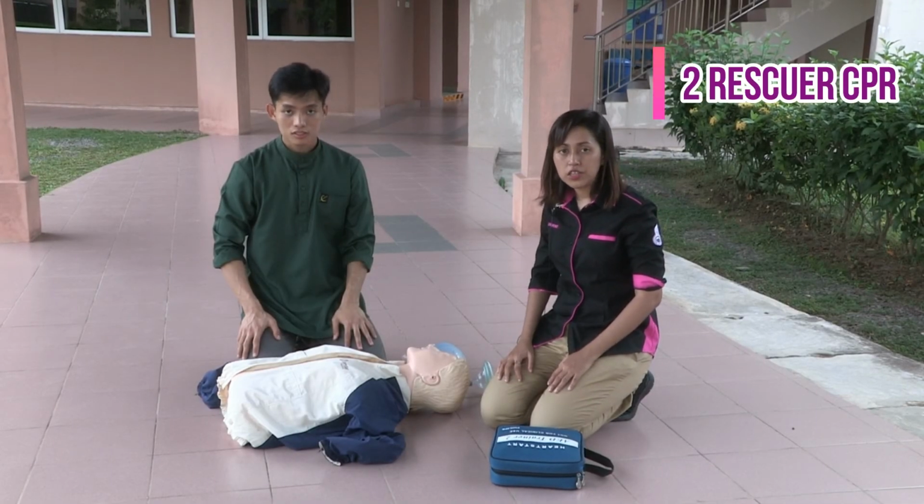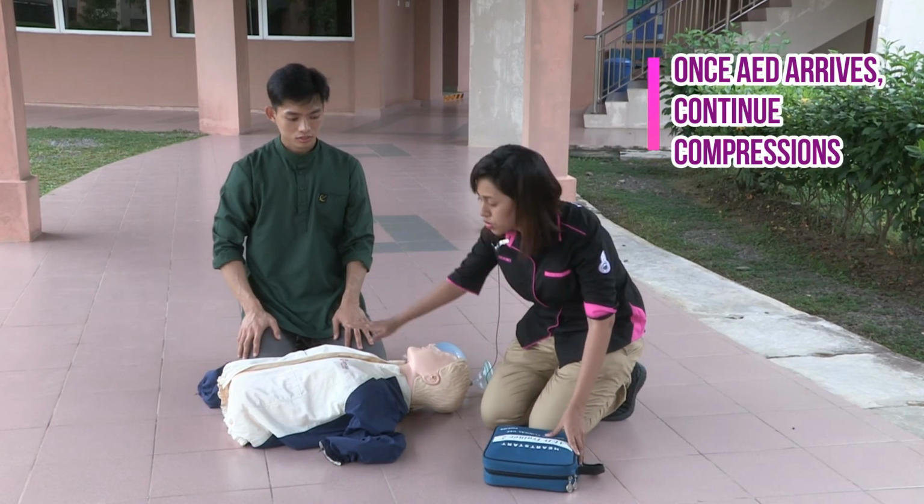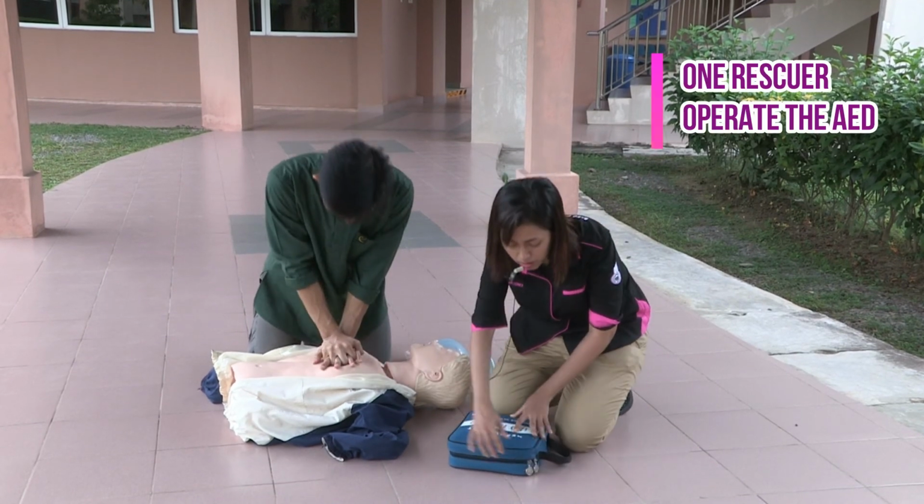During two-rescuer CPR resuscitation, once the AED arrives, one rescuer will continue the compressions while the other rescuer operates the AED machine.